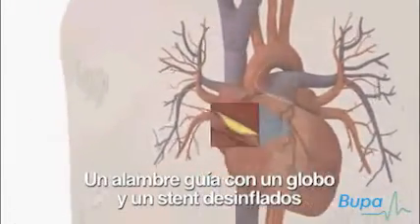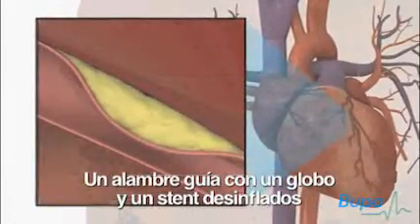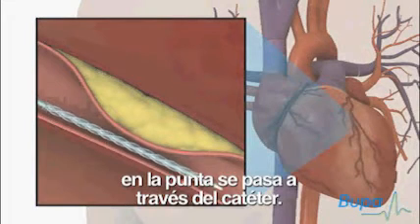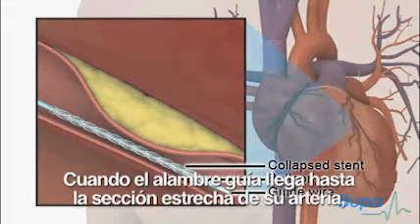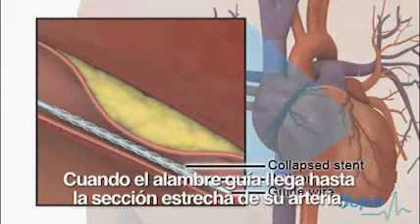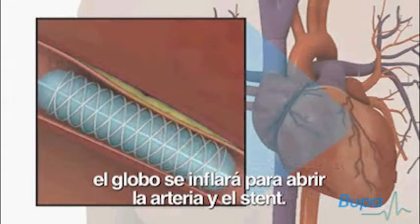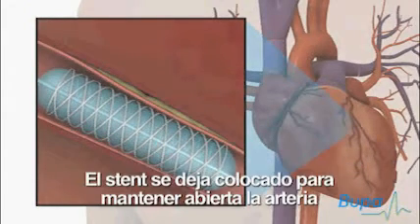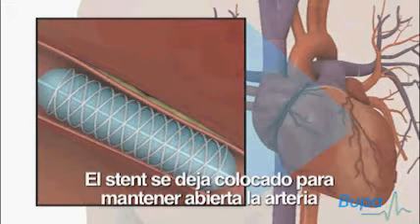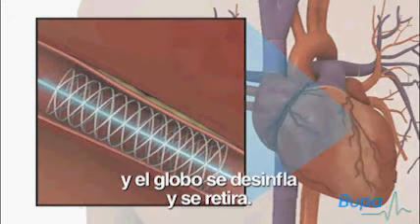A guide wire with a deflated balloon and stent at the tip is passed through the catheter. When the guide wire reaches the narrowed section of your artery, the balloon will inflate to open up the artery and the stent. The stent is left in place to keep the artery open and the balloon is deflated and removed.